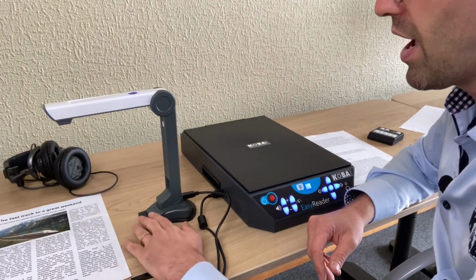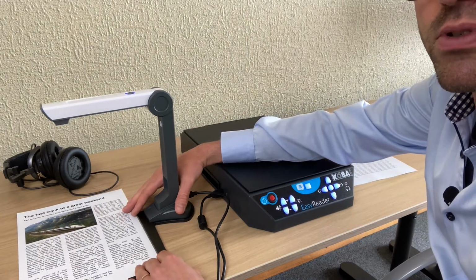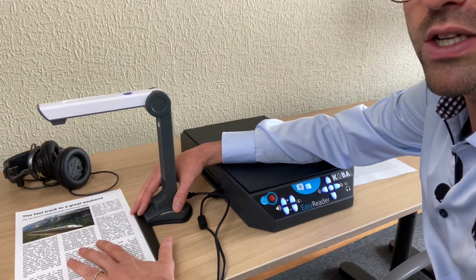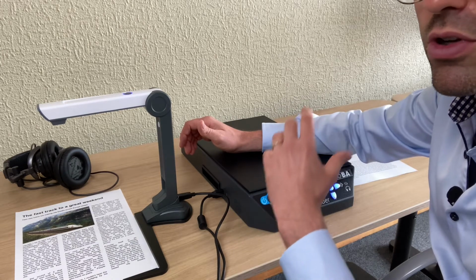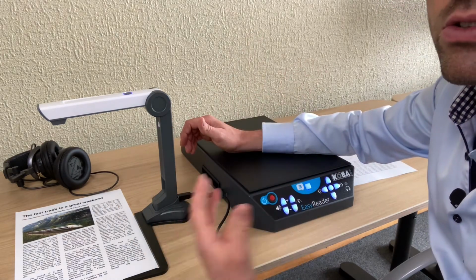Over here we have a sort of plastic where you can feel if your page is positioned correctly under the camera. Pay attention that it works well for just normal pages, but when you have a book, sometimes the book tries to open and then the scanner is always better. Also in terms of quality, a scanner is always better than a camera because it depends on the light conditions in the room.